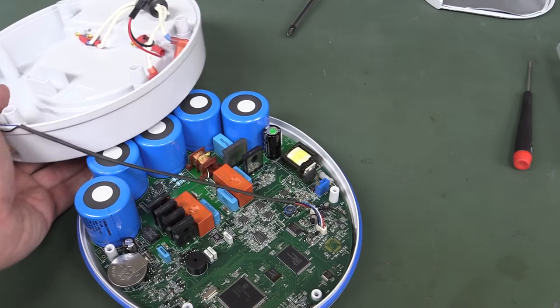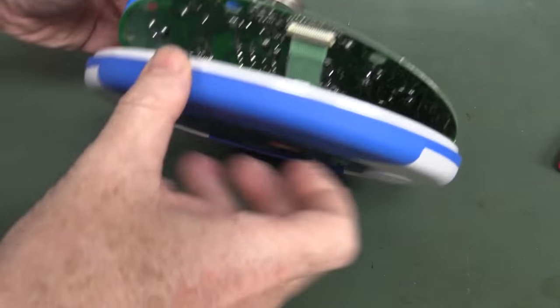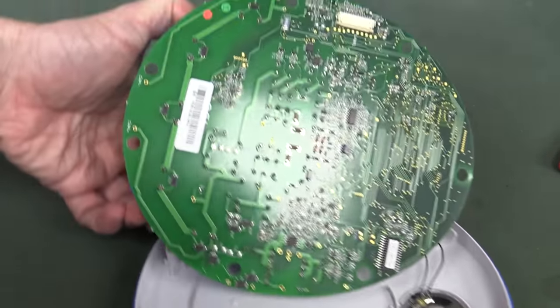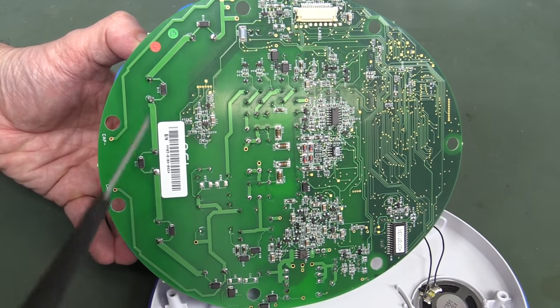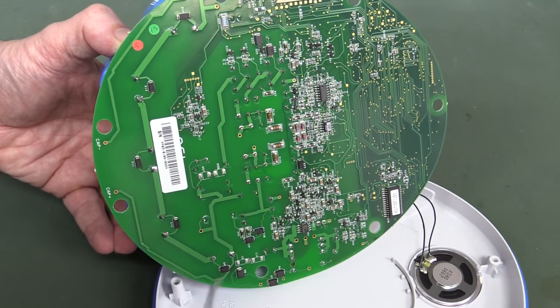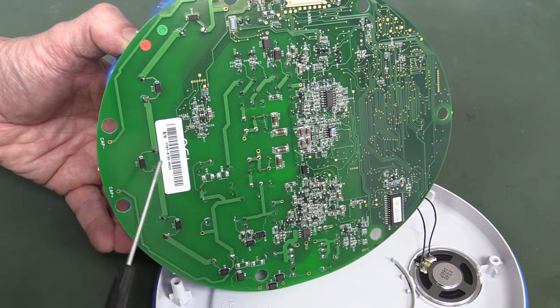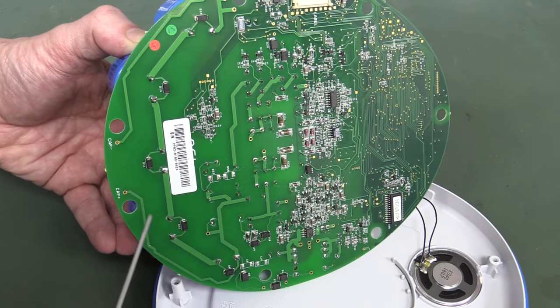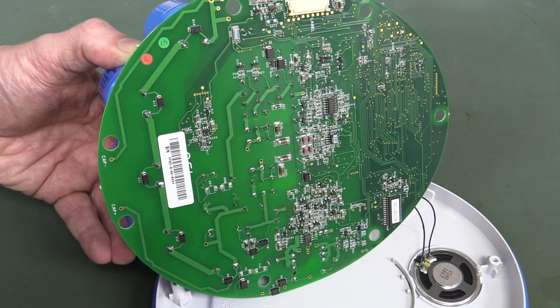Bingo — oops, I pulled the entire connector off the bare pins for the battery. And it looks like the whole board is just going to lift out. There we go — we've got ourselves a ribbon cable going down to the speaker. Double-sided load, not a huge amount on the back. There are some Melf resistors — I'm a bit of a Melf fanboy. And of course the high voltage stuff — there are our diodes. You can instantly see they've got a diode across each cap to prevent reverse charging, and you can see the caps are all in series.